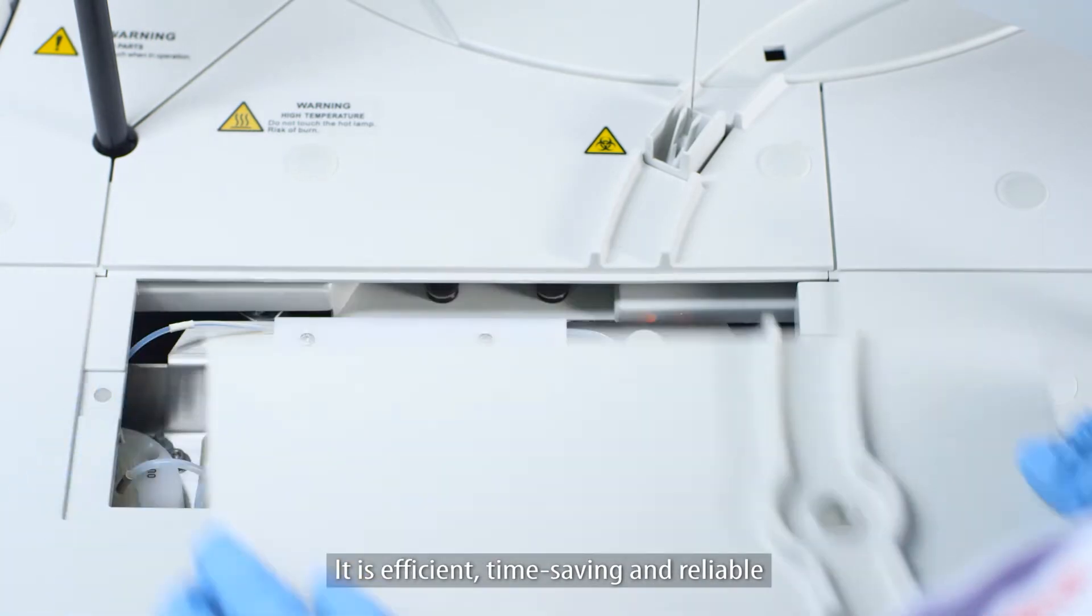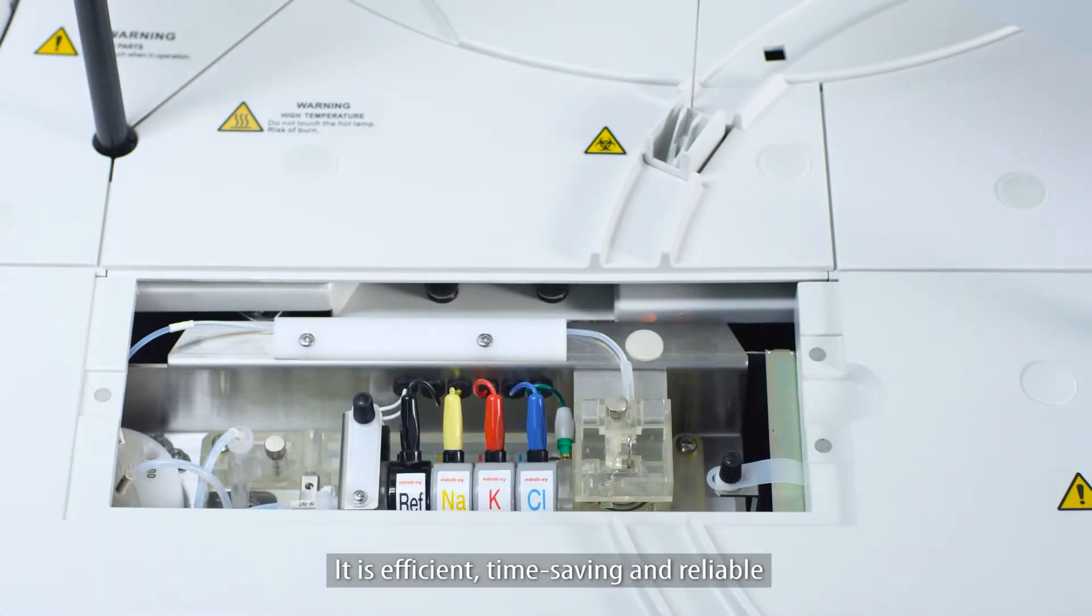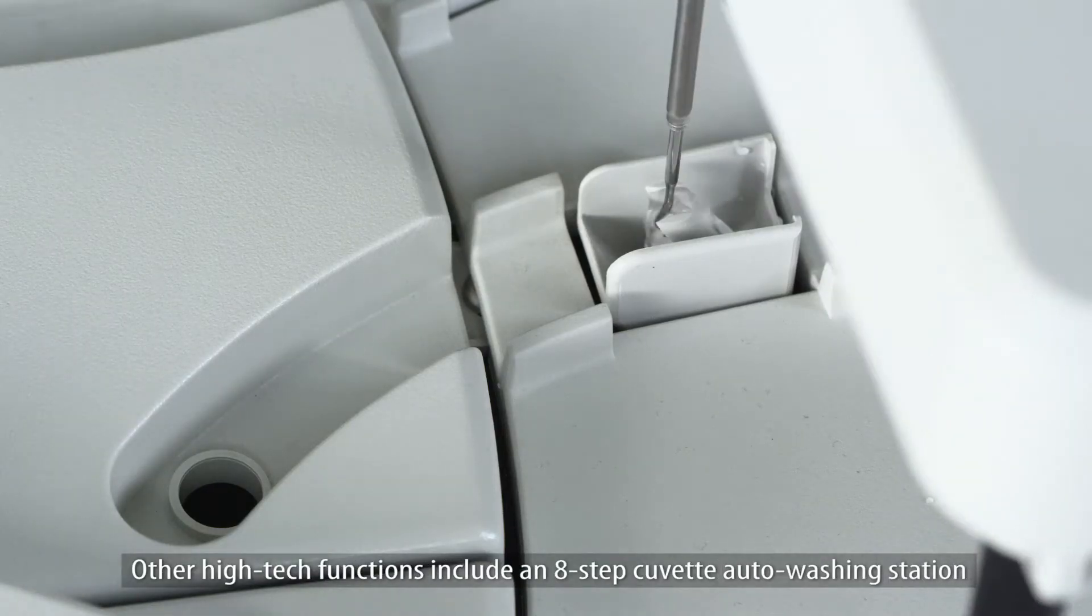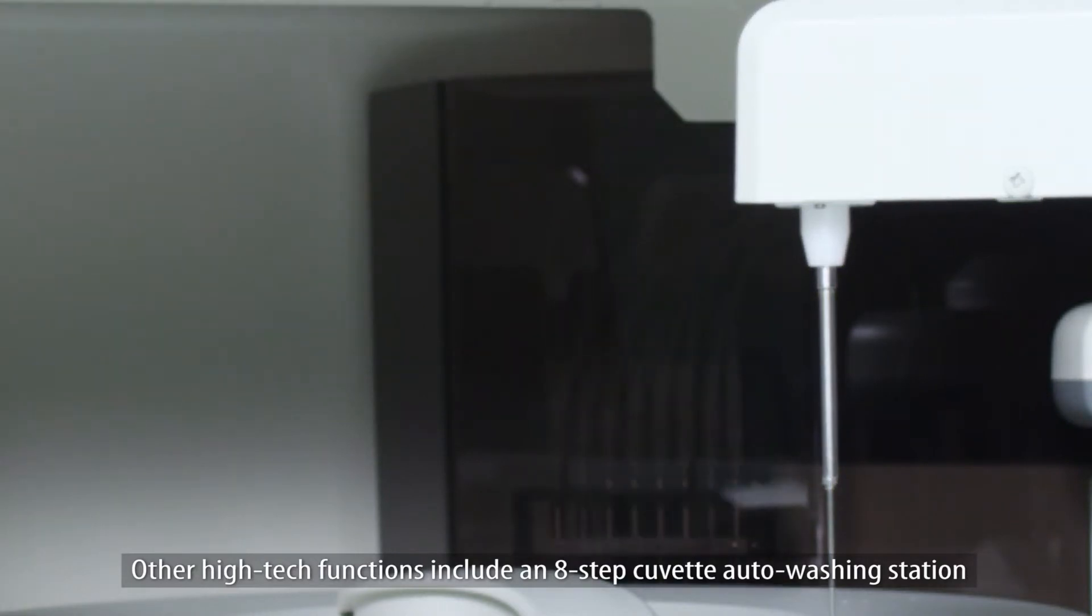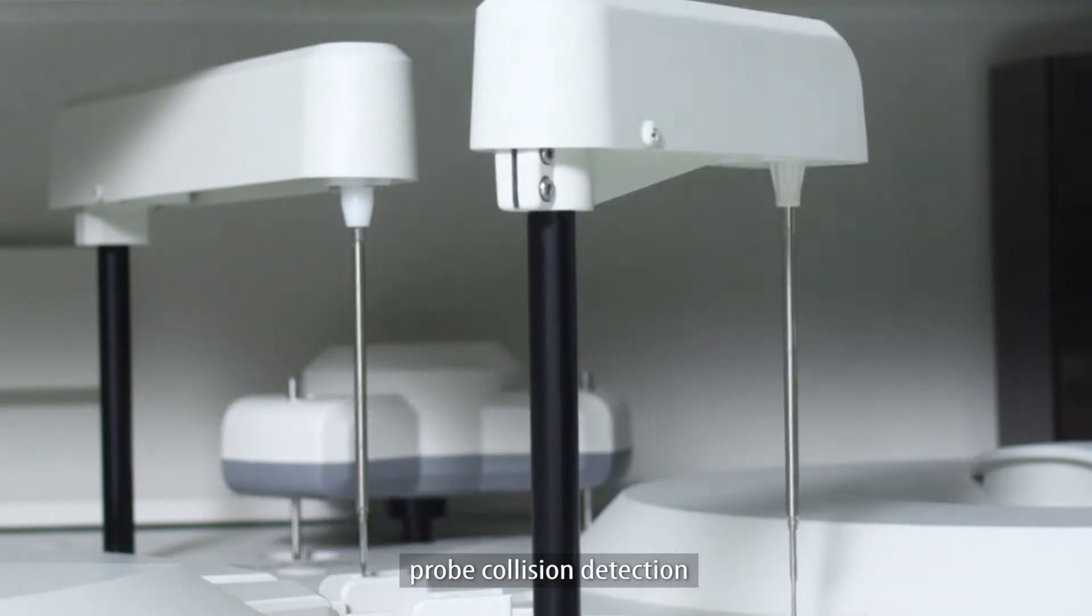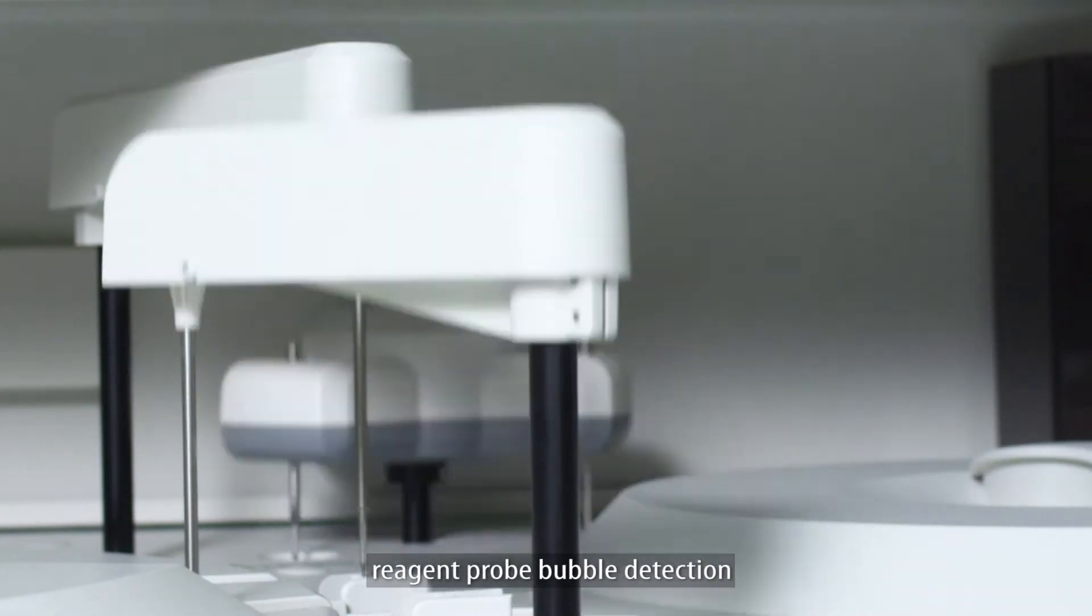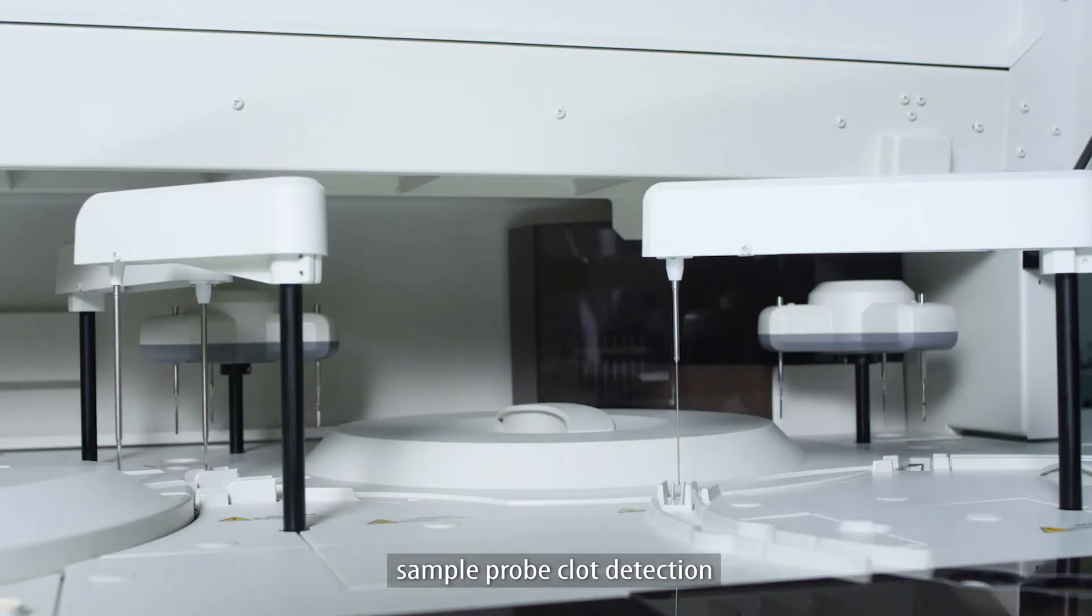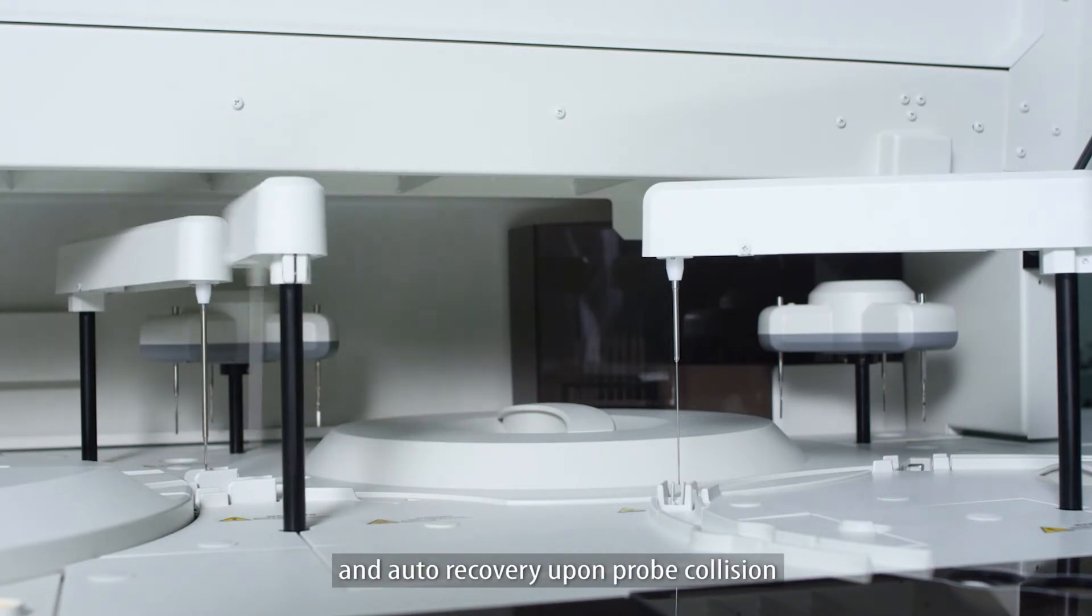It is efficient, time-saving and reliable. Other high-tech functions include an 8-step cuvette auto-washing station, probe level sense detection, probe collision detection, reagent probe bubble detection, sample probe clot detection and auto-recovery upon probe collision.